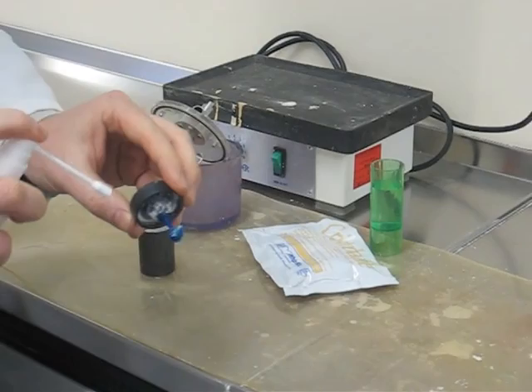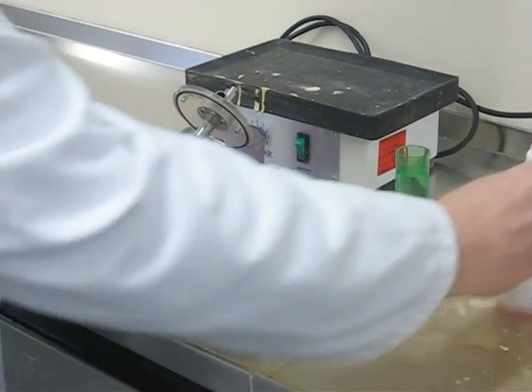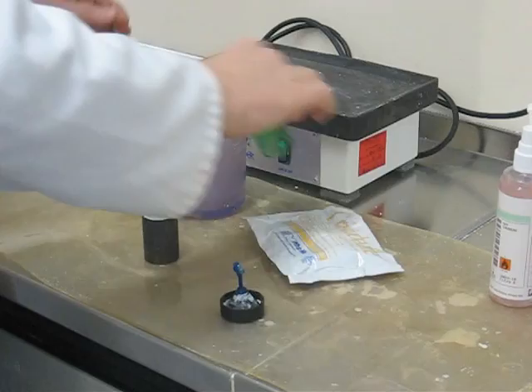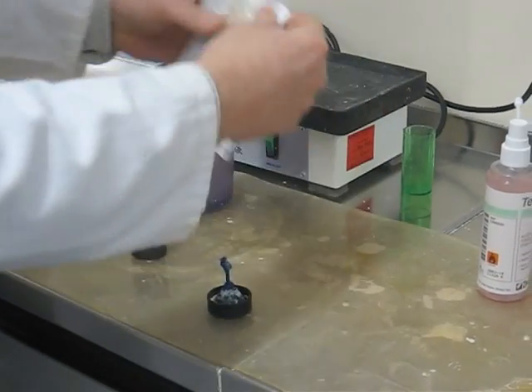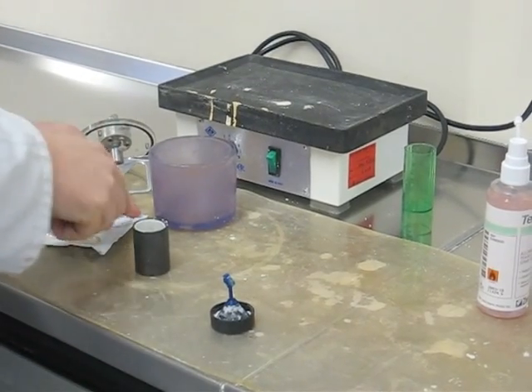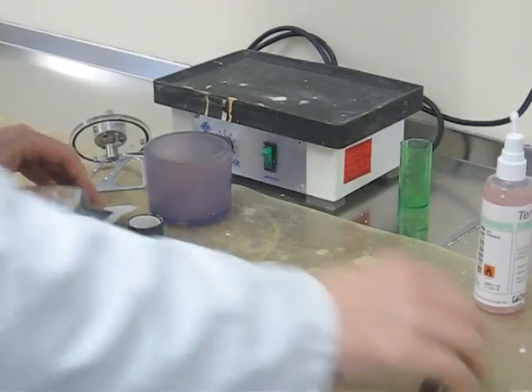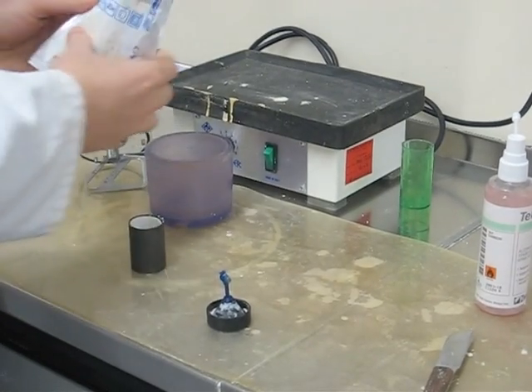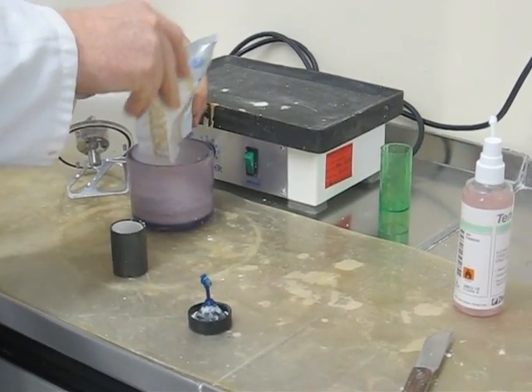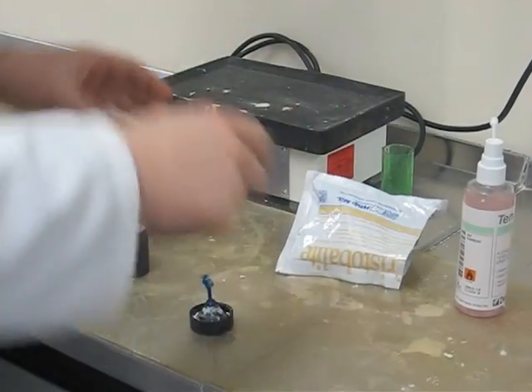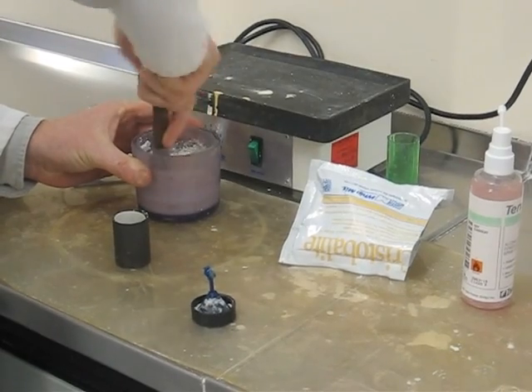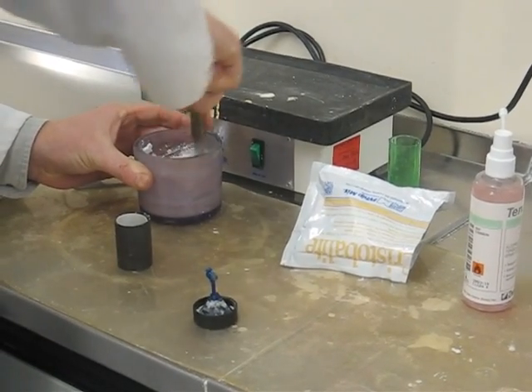On the bench now we've got some surface tension relieving agent there going on that will be allowed to dry all the excess blown off and this is the Cristobalite already mentioned which is a gypsum based refractory material, gypsum and plaster of Paris based refractory material and this is quite sturdy up to about 800 odd degrees C. So this is going to be vacuum mixed in the same way as you did for your model material. Hand mixing to start with.